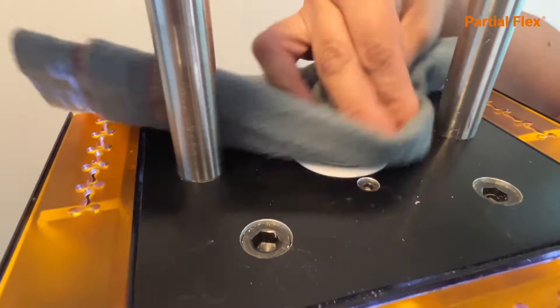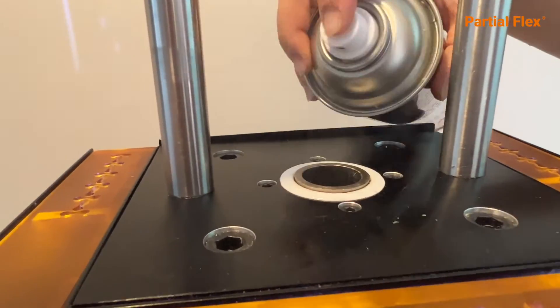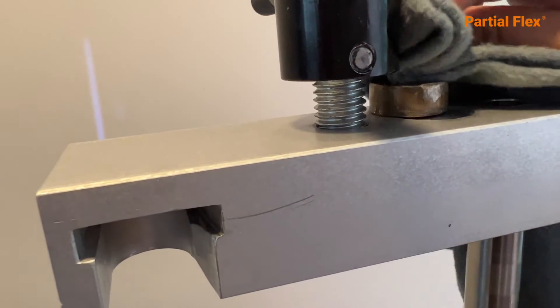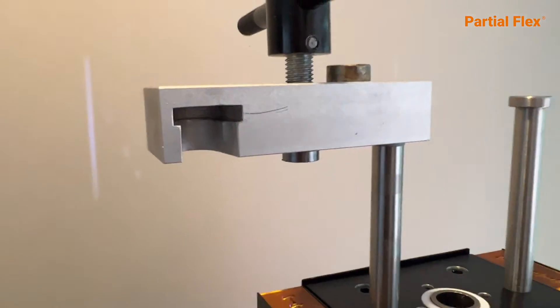Spray Molding Flex and you're ready — good to go with your next injection. Always remember to return the injection stopper to the stopper section so you do not forget to use it.